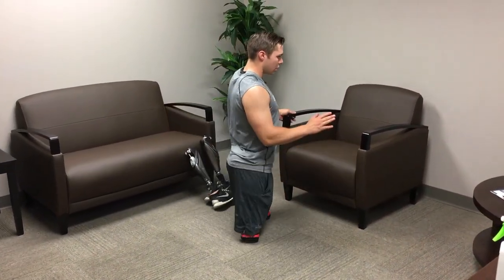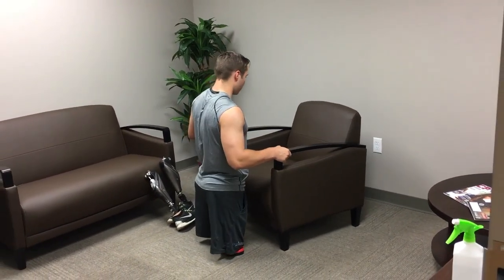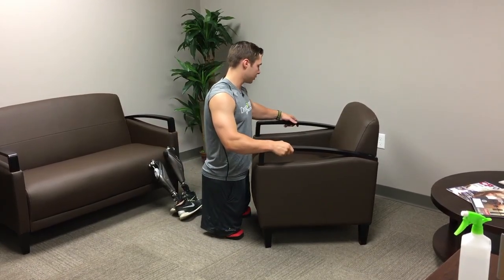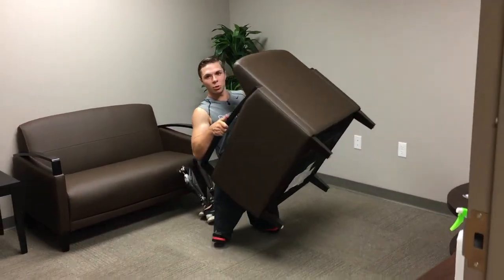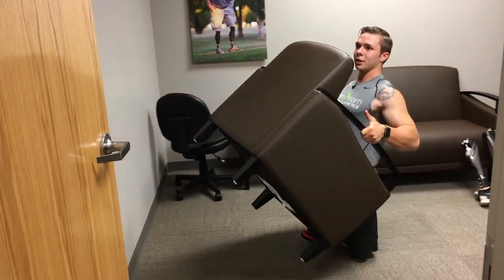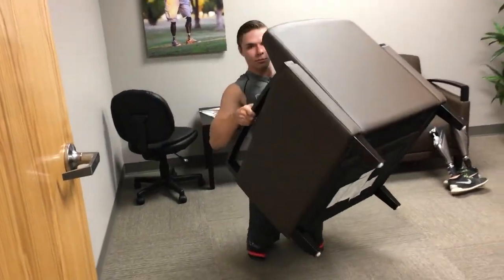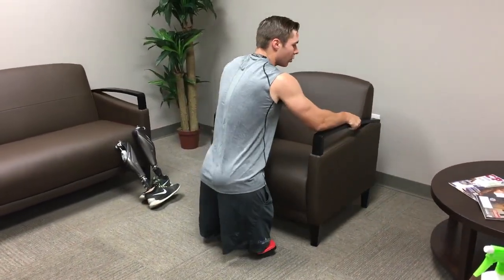Also, this is a very heavy chair — I tried moving it earlier. Another perk to these is that you can move things a lot easier than if you had full-length legs on. If you're moving furniture across the room or what not, you can pick it up, sit it down, move it however you need to. If you don't like where it's at, you just pick it up and move it back. Just be sure not to put a hole in the drywall.